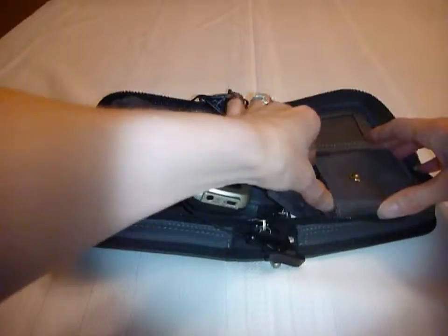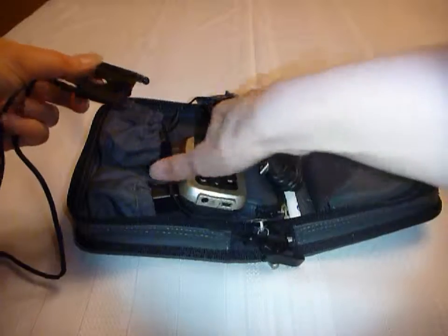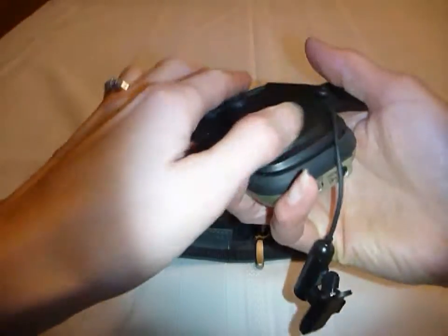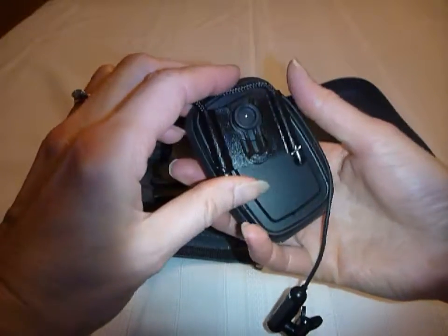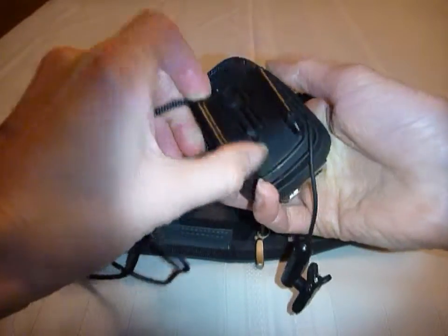Also, there's a neck loop that you can slide onto the back of the transmitter, the same way as you hooked the belt clip on — just onto the round knob — and you just click it into place, and you can remove it the same way it unclicks.